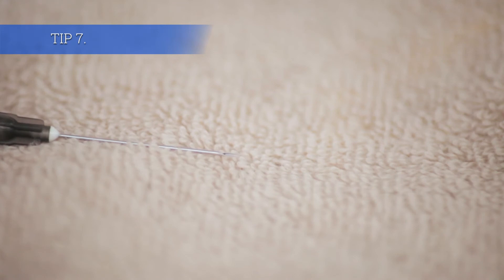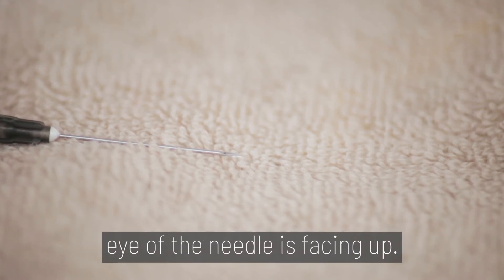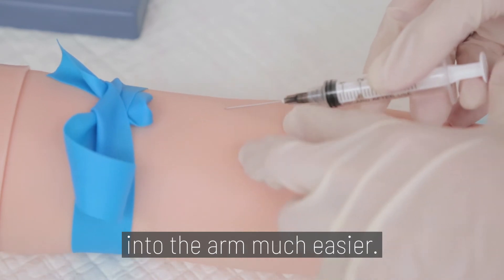Tip 7. When using needles, make sure the eye of the needle is facing up. This will make inserting the needle into the arm much easier.